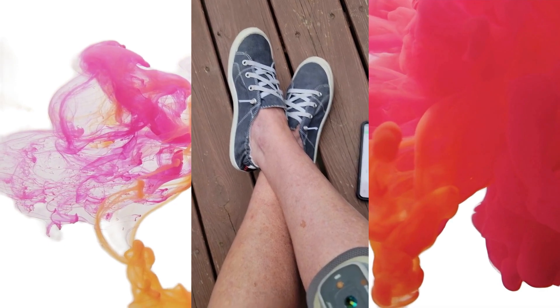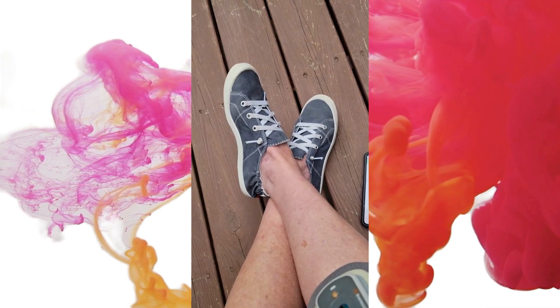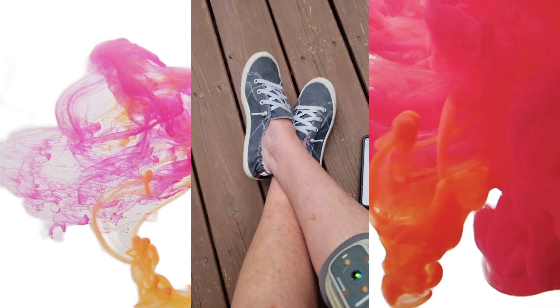Now, accidents still happen, as you can tell. The knees show some falls, but that's okay. You just kind of get up and keep going, and I'm thankful to have a device like this that allows me to live even better. If you have any questions, just let me know.